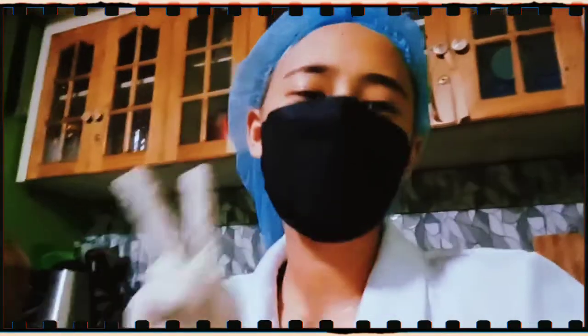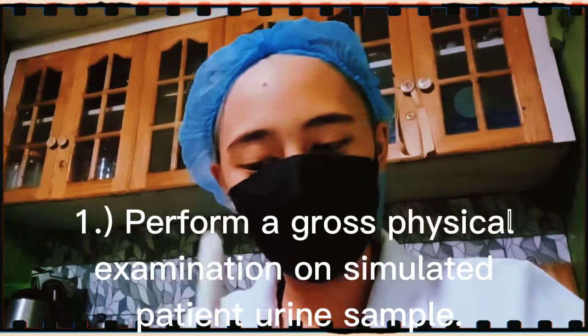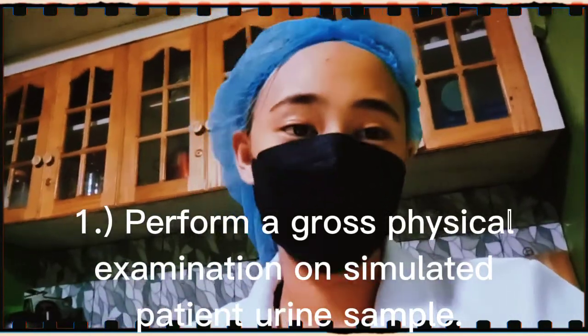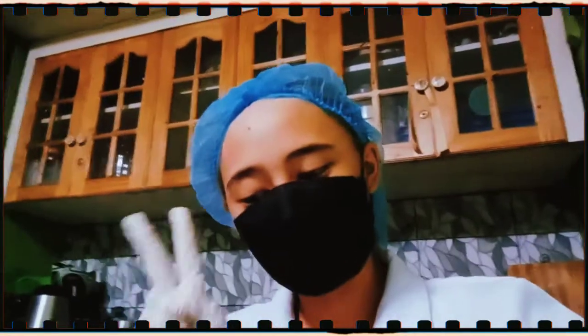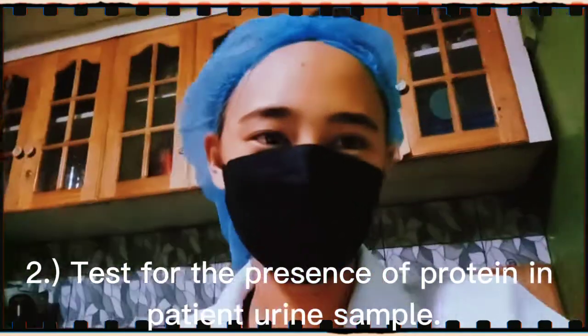So there are only two objectives in this experimentation. First is perform a gross physical examination and simulated patient urine sample. The second is test for the presence of protein in patient urine samples.